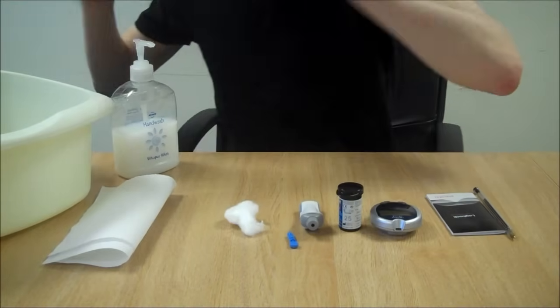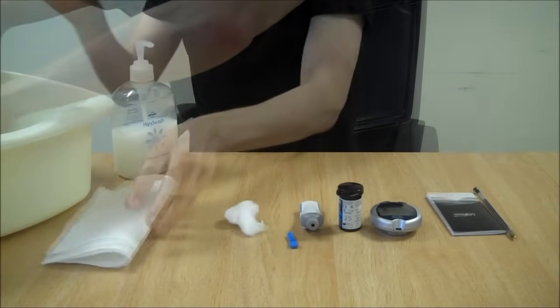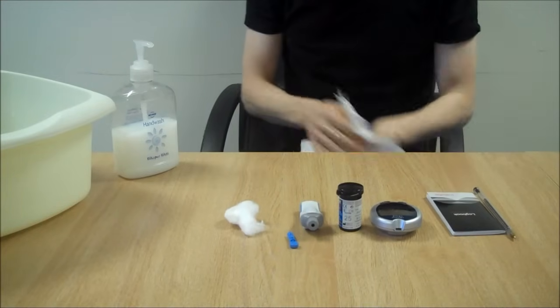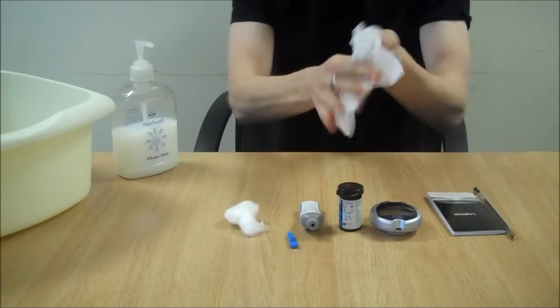Step 1: Wash your hands first. Make sure your hands are thoroughly dry before starting the test.